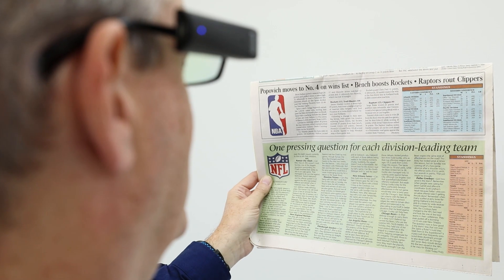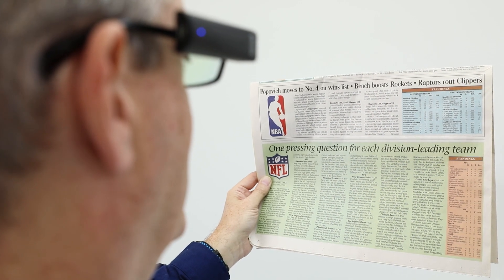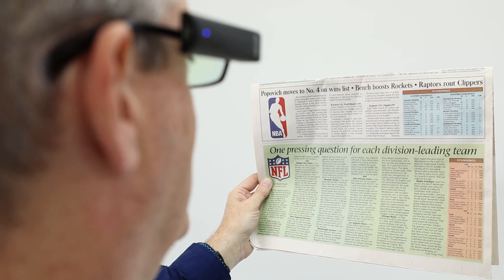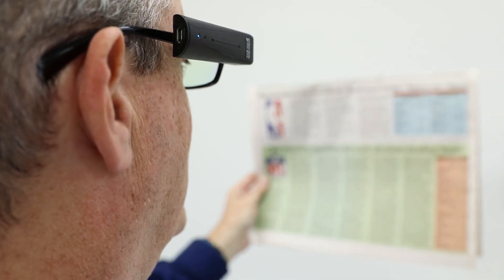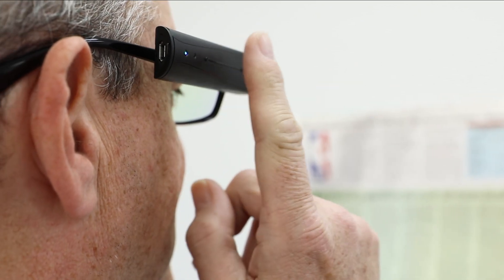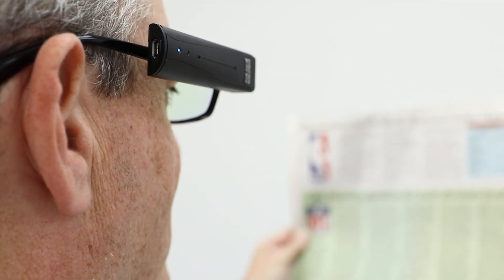Smart Reading also enables you to find a specific headline or article. Double tap the touch bar and say, Smart Reading. The device announces: Ready.